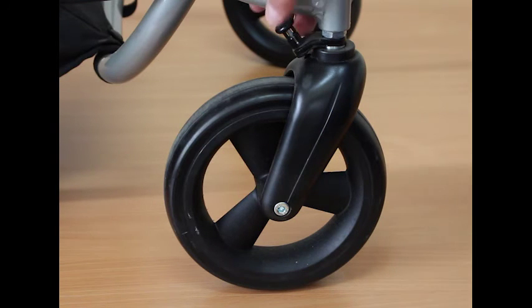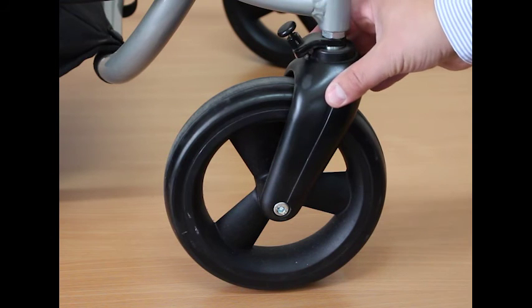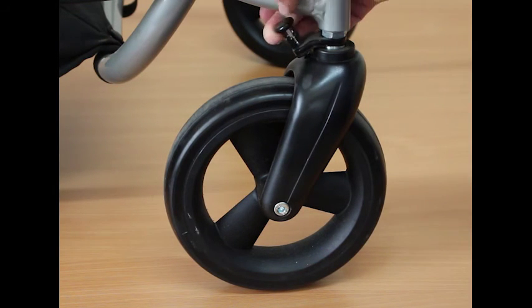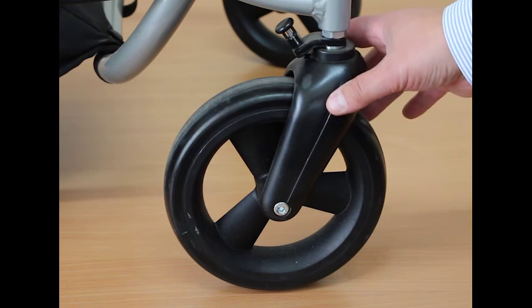The Streetwise casters are fitted with caster locks, operated by rotating and allowing to slip into the catch. These are very useful for wheelchair accessible vehicles to stop the casters spinning while going into a confined space. They are also useful on public transport where there isn't a securing system, helping to prevent the buggy from sliding out sideways.